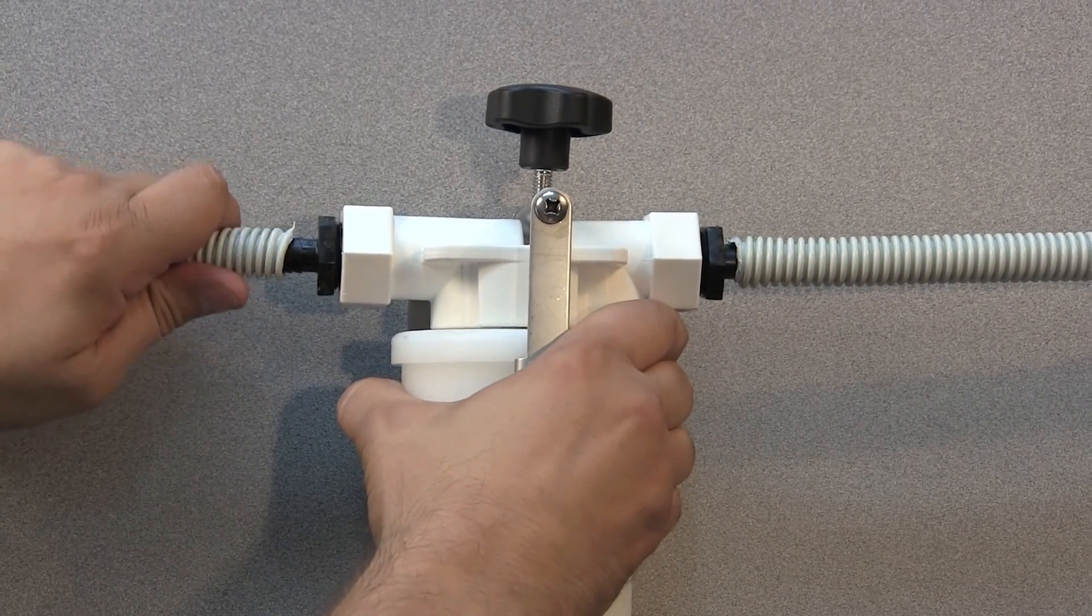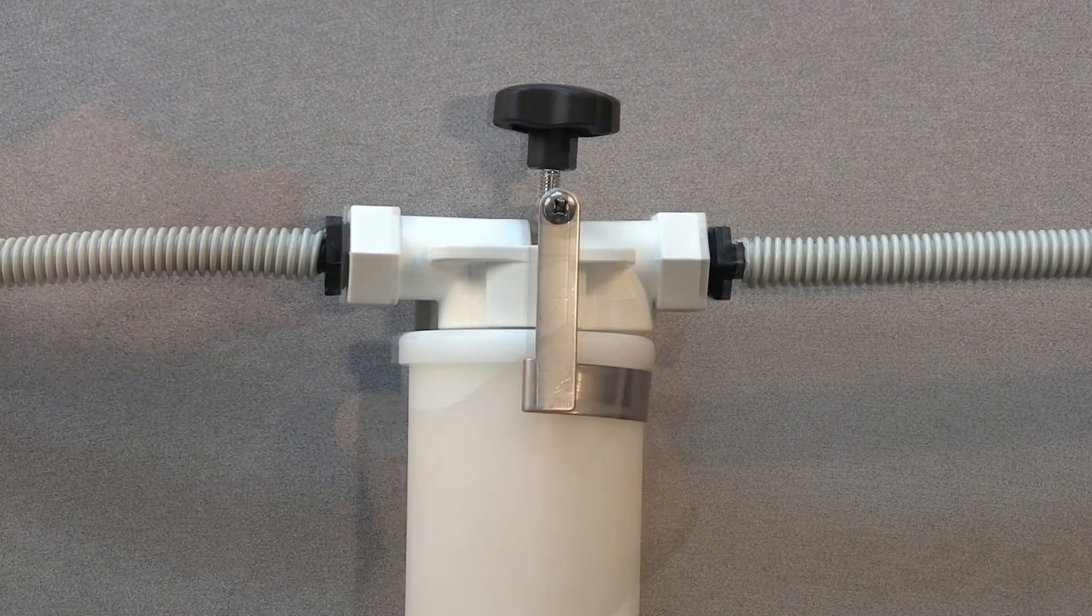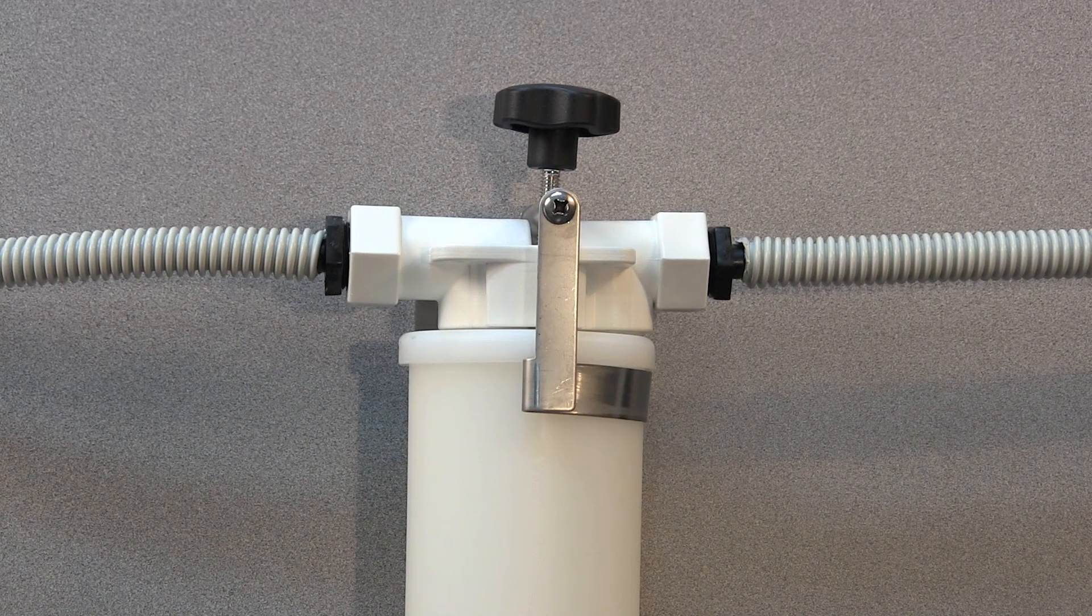Remember to replace the screw on caps you saved!